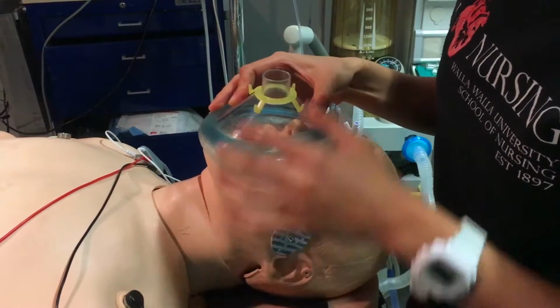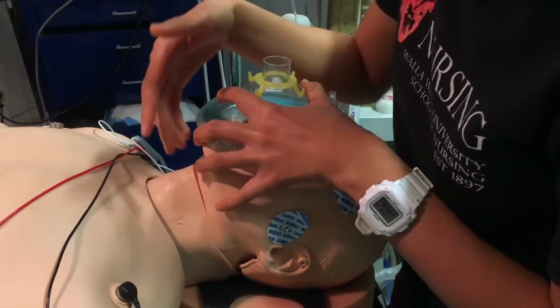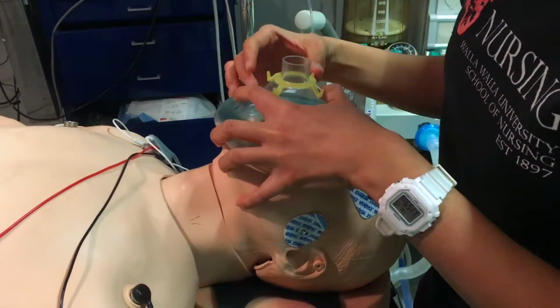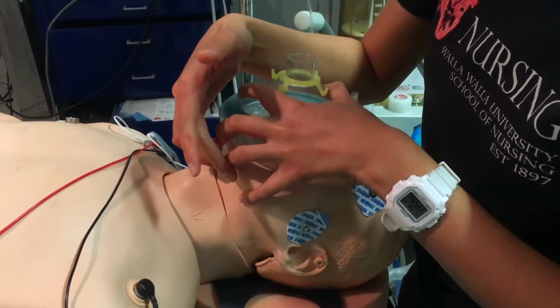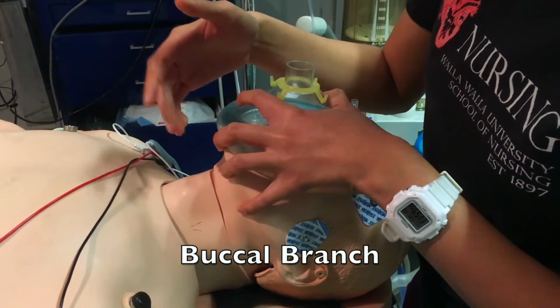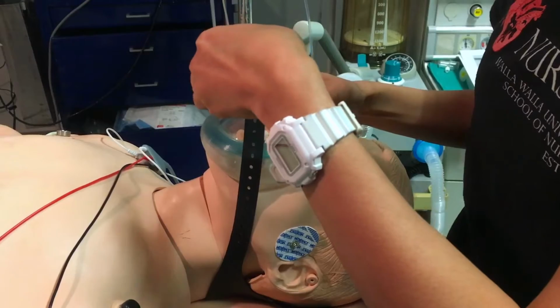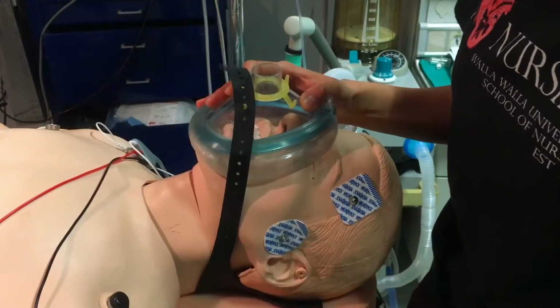Then there's also, if you push too hard during the face mask, part of the facial nerve can be damaged. The buccal branch of the facial nerve can be damaged. There are these things called face straps that are kind of nice.